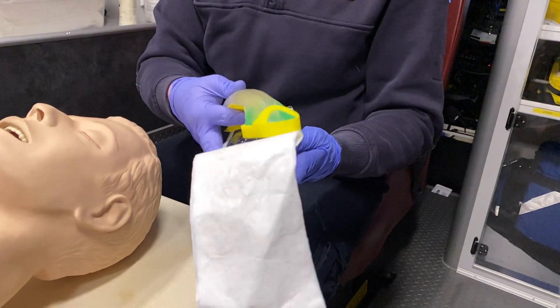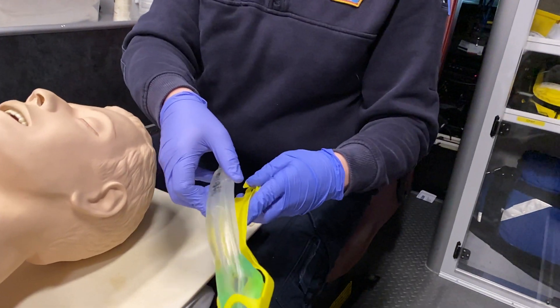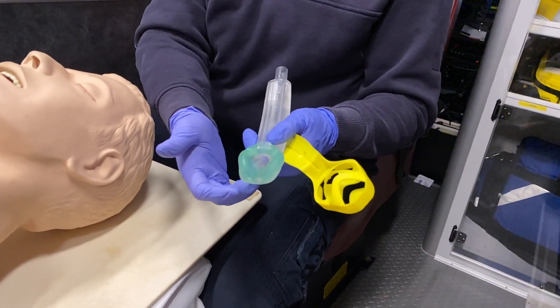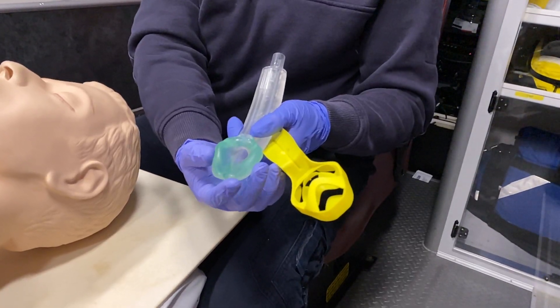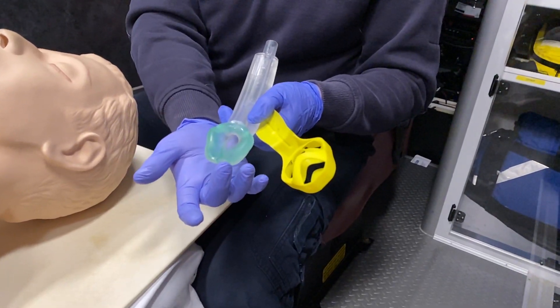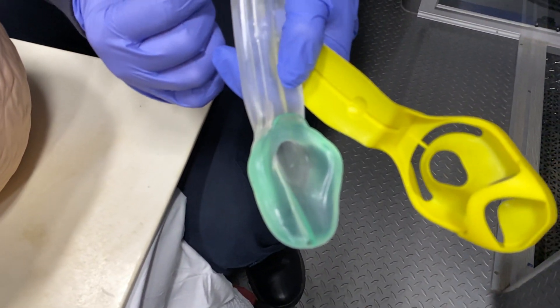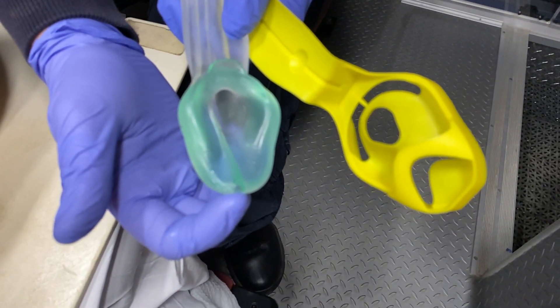To familiarize ourselves before we use it: the i-gel comes out of a plastic case and the end of the device is kind of jelly and sticky. When it reaches the back anatomy of the airway, it creates a heat seal, isolating the trachea and leaving the esophagus below. The i-gel also has a port for a nasogastric or orogastric tube, so we can suction out stomach contents.